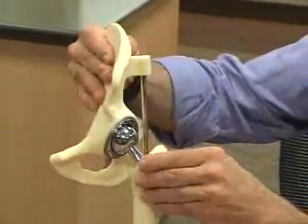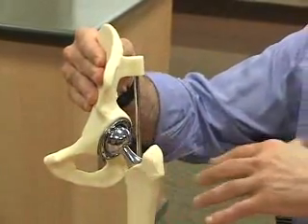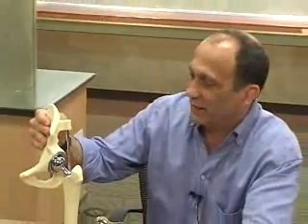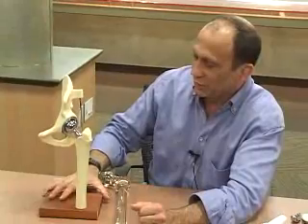So this is a standard hip replacement — tried and proven over many, many years, works beautifully, excellent pain relief. And the newest sensation is called a surface replacement.